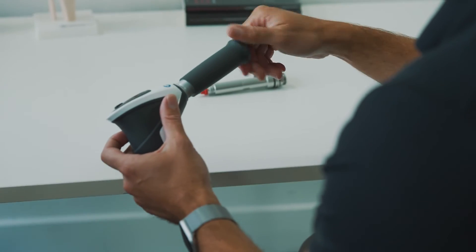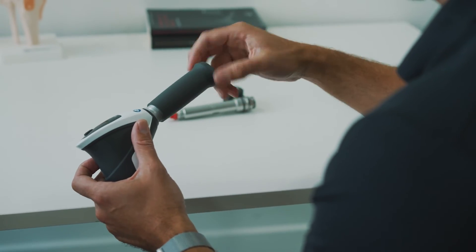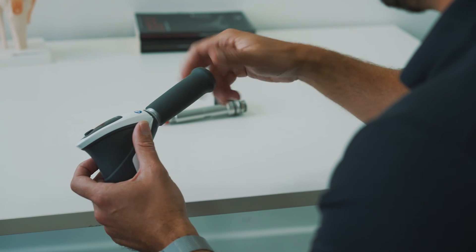Reattach the grip, ensuring it's securely fastened.